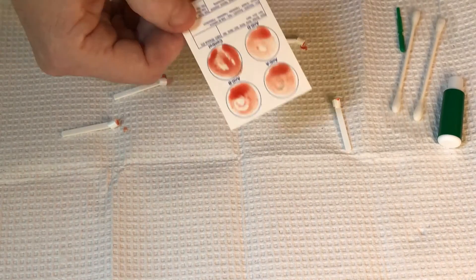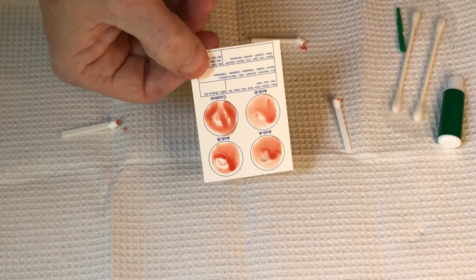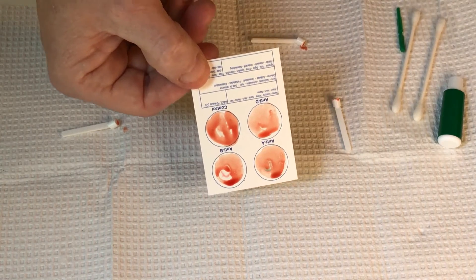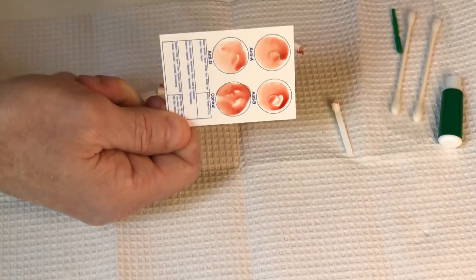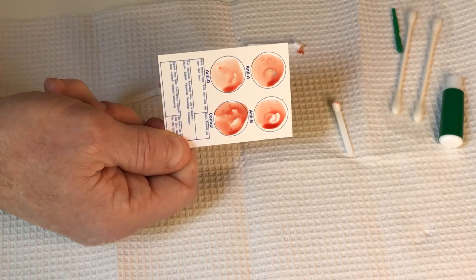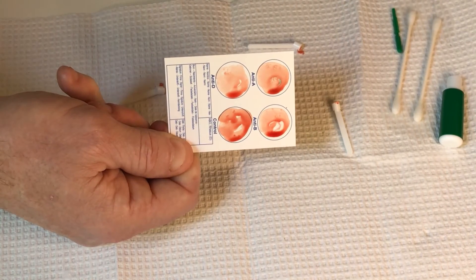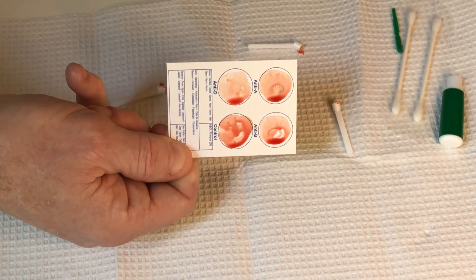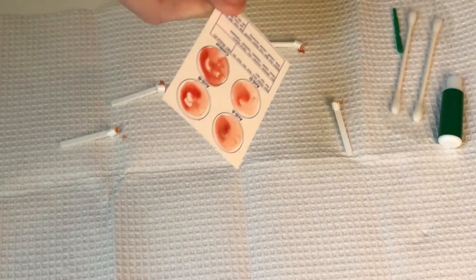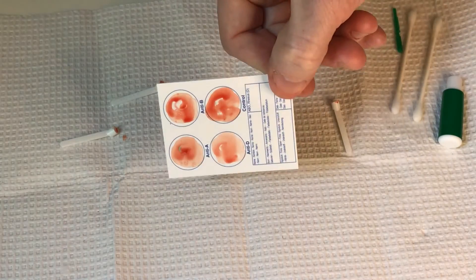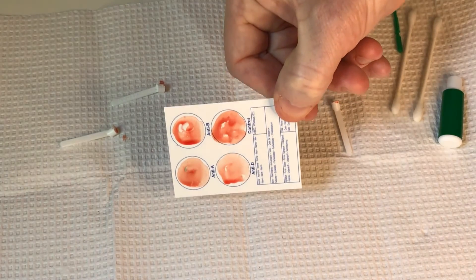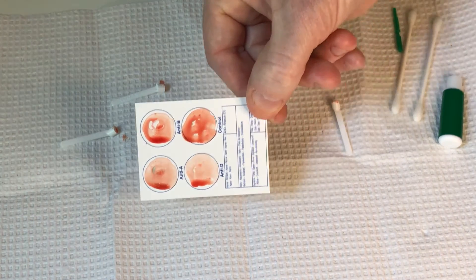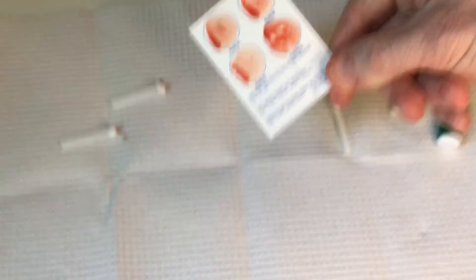Tip it right for about ten seconds. I'm a little short, but I already know the answer so I'm kind of cheating. And tip it left. Now you don't see a whole lot. Let me sneak around over here.